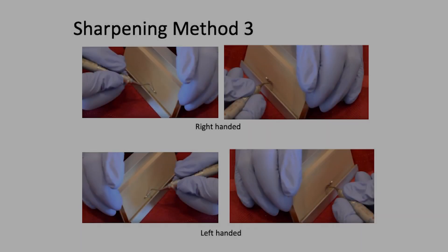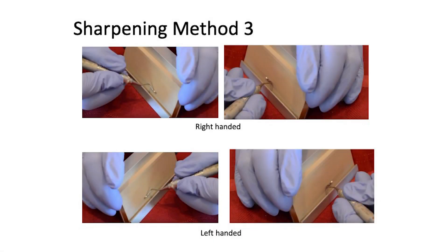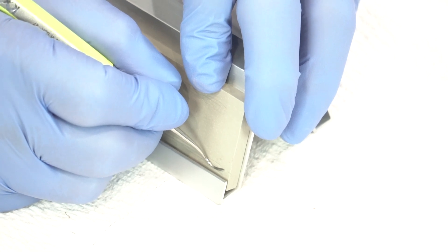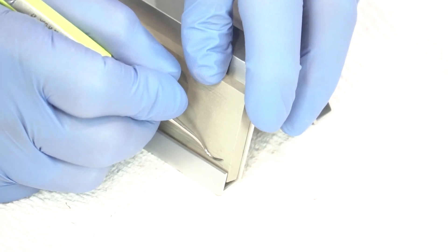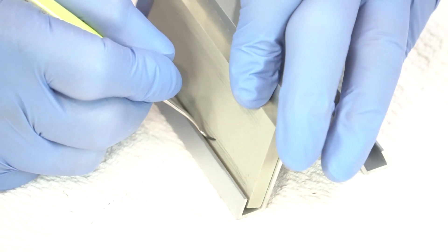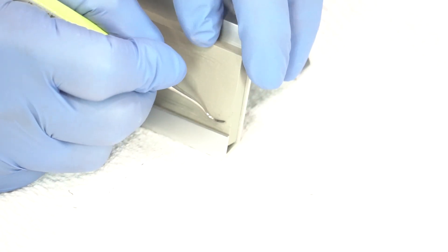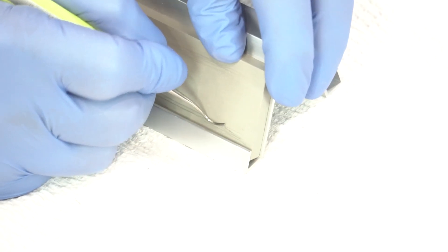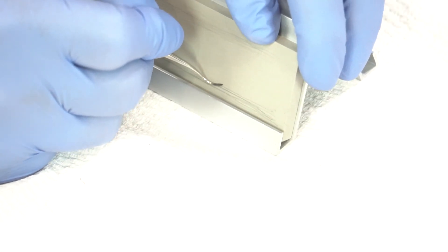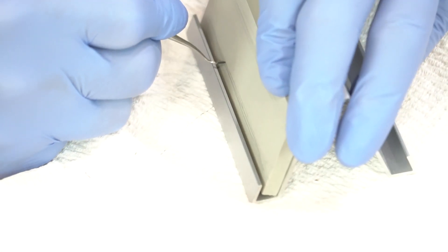Method three: fulcrum on the table, face is parallel to the tabletop. Start at the heel of the instrument using the whole fixture, moving around the blade — heel third, middle third, toe third, toe.